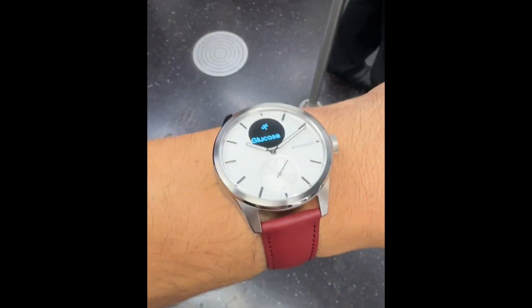I love using third-party devices. The DIY community and others have found ways to connect devices to view CGM readings. Is Abbott open to working with companies — whether it's Withings, like this watch I'm wearing — I love seeing my readings on here. Is Abbott open to working with third-party companies to connect readings? Even the Apple Watch — I would love to see a Freestyle Libre app on the Apple Watch. There are certainly lots of ways to collaborate with third parties. We have an API that's approved and cleared by the FDA that allows us to send real-time glucose readings to third parties. So we certainly are looking at all of those opportunities.